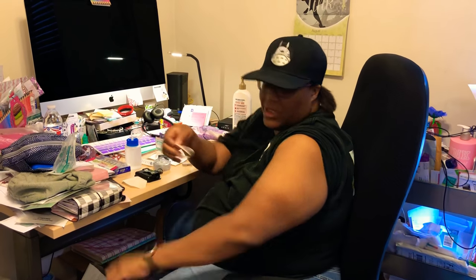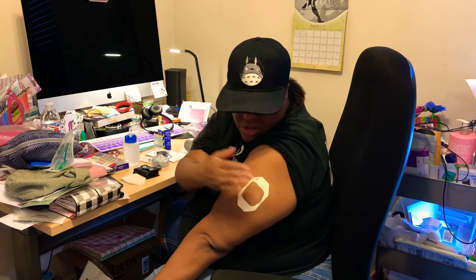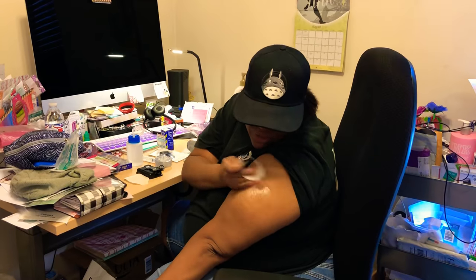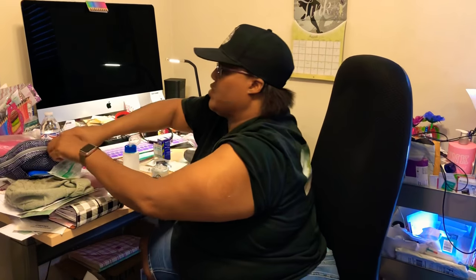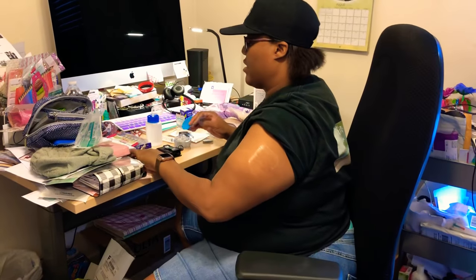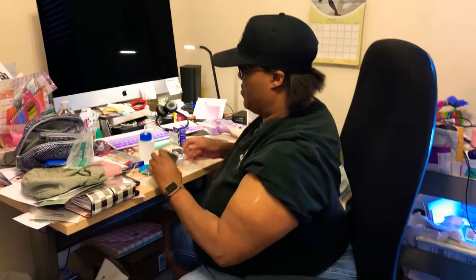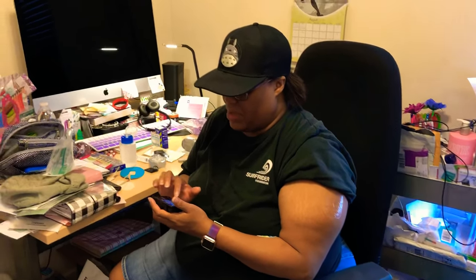I'm going to put it on. I try to do that one-handed thing — I've got this down to a one-handed deal, especially with the G6, it's really easy. I put that down first — a little crease, who cares. I always put on a special overlay and I carry one with me all the time. This is a Fix-iC — this is what I put on top of everything after it's all done.